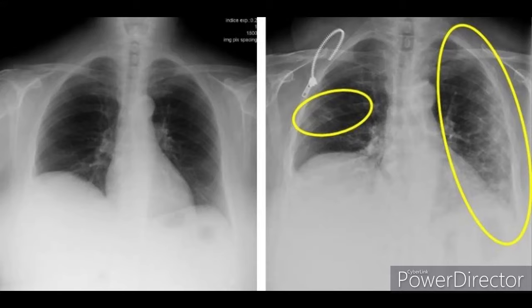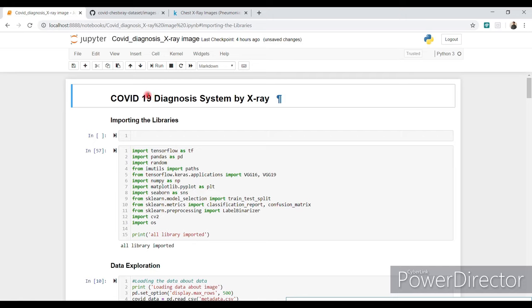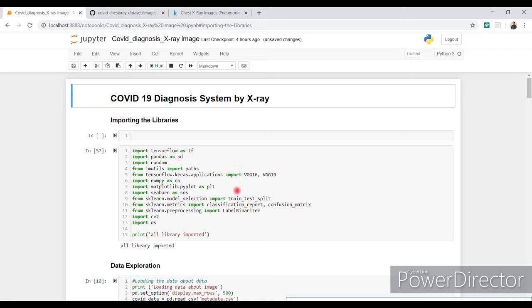Hello guys, my name is Karan Patel. In this video I will show you how you can diagnose COVID-19 from chest X-rays. Let's move to the screen. I'm using a radiological system which is X-ray, because currently we have data of only X-ray images, not CT images.